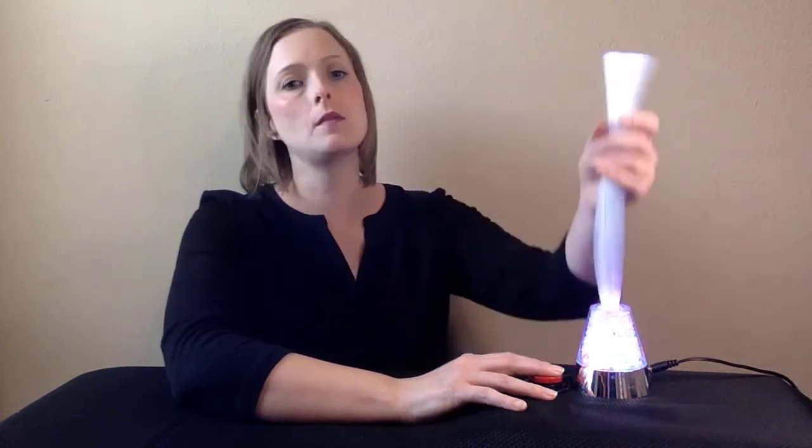To clean the Fiber Optic Switch Adapted Light, wash the Fiber Optic Tails with mild soap and water. Do not immerse in water. Dry the tails with a towel, ensuring that they are fully dry.